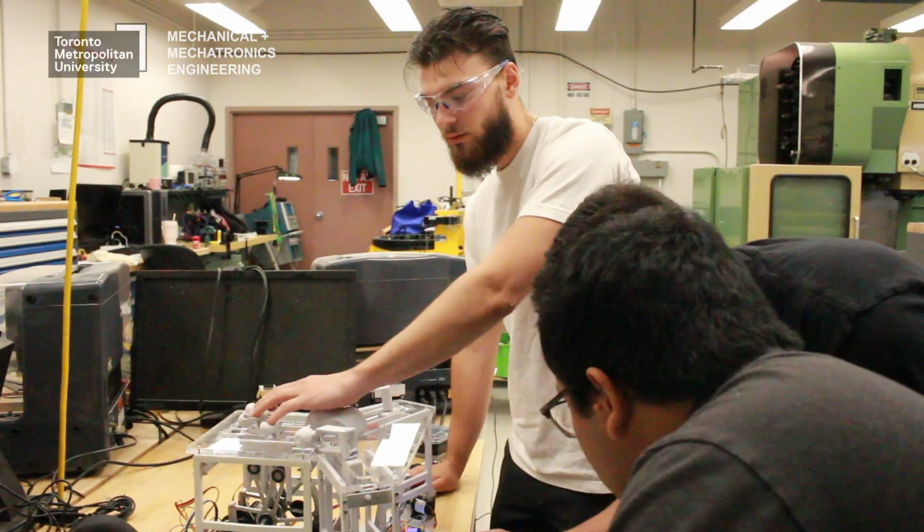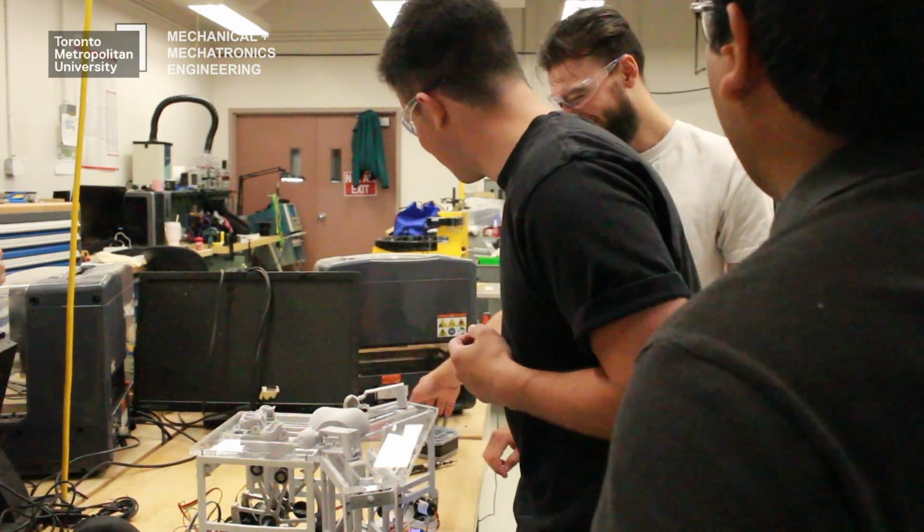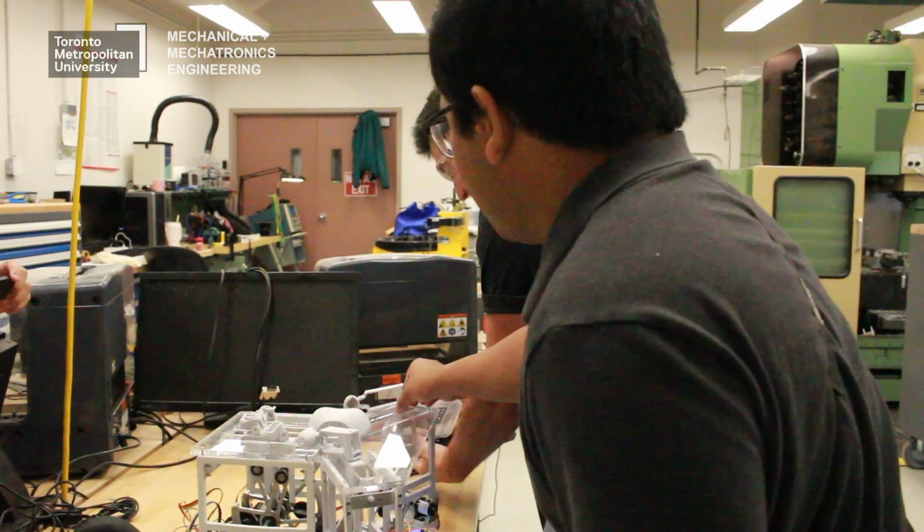The issue is there's a huge barrier for entry if somebody has problems and wants to get rehab on their fingers. So we made this device. The goal was to make it a lot cheaper and portable so that they could buy one themselves and have it in their homes. So this device is normally for people with hand injuries and or nerve damage, and so they have limited strength and mobility in their fingers.